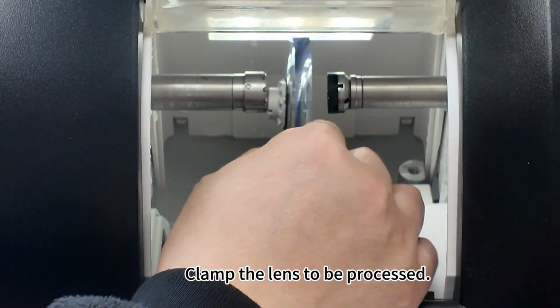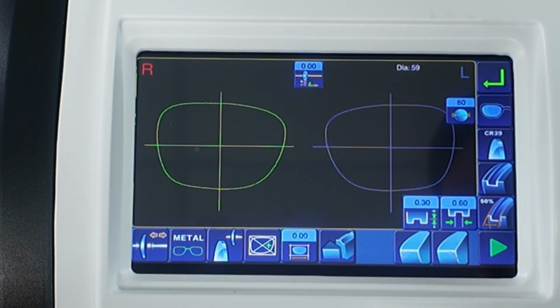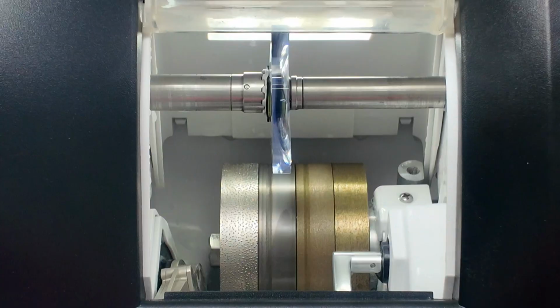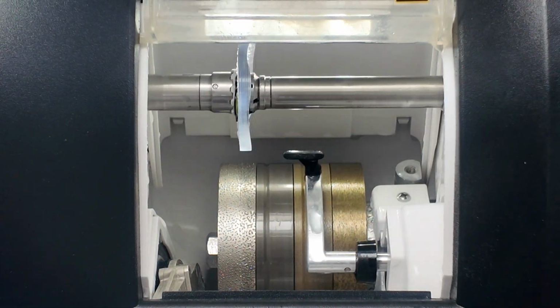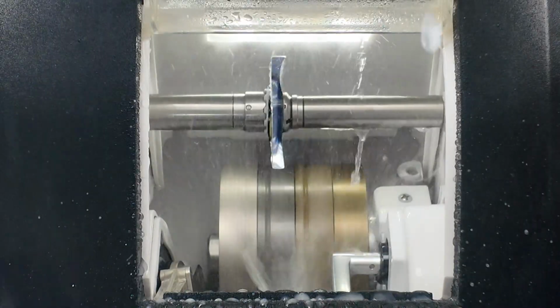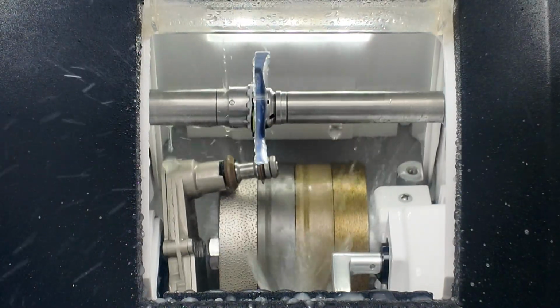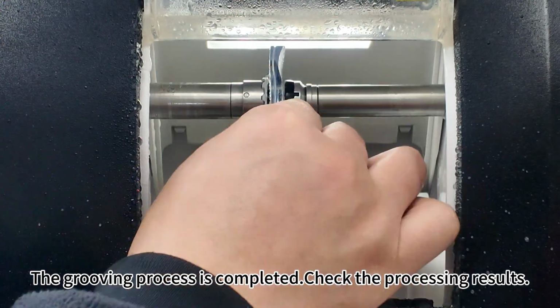Clamp the lens to be processed. Initiate the processing. The grooving process is completed. Check the processing results.